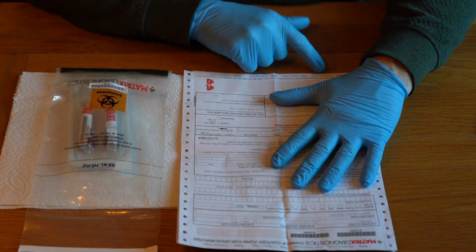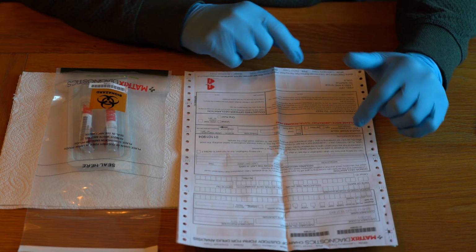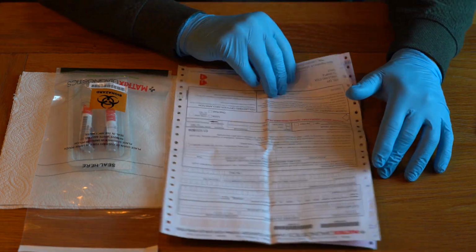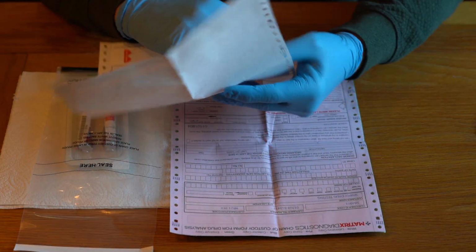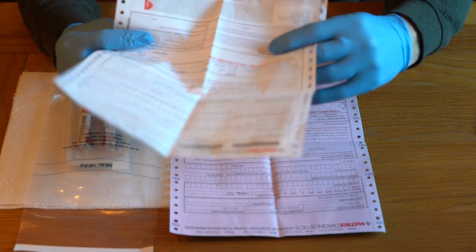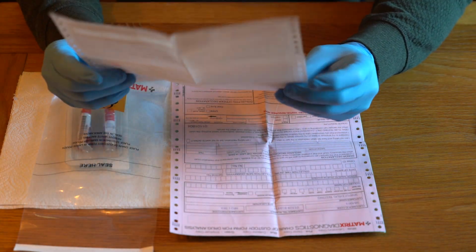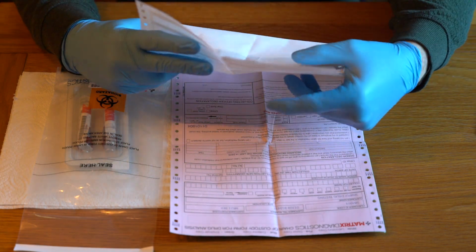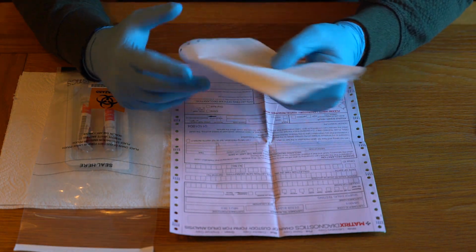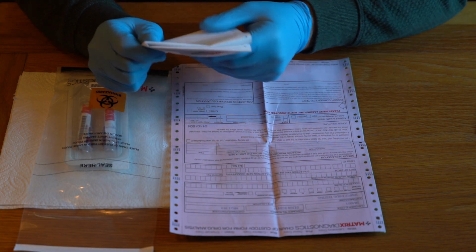The form at the bottom will tell you where each of the copies has to go. So the white copy is the laboratory copy, so this is going to get returned to the lab along with the samples. I always give this to my kit assessor and ask them to check to make sure it's all been signed and dated in the right place. We have provided you with an image of, or a booklet that includes, a completed consent form, so that will tell you exactly what it should look like when it's completed correctly.